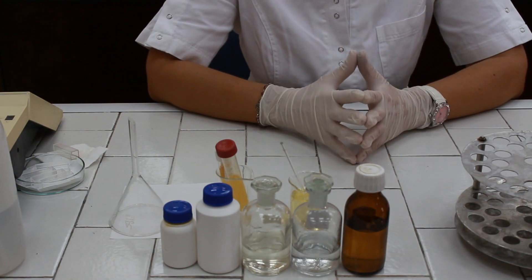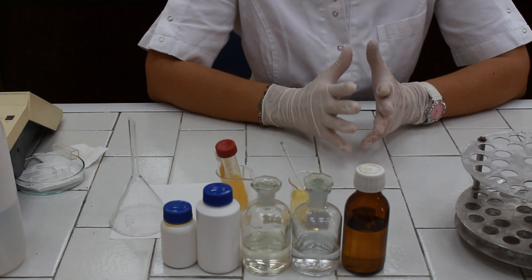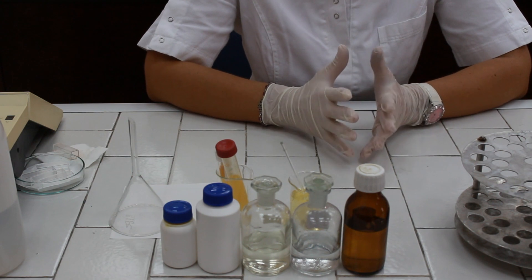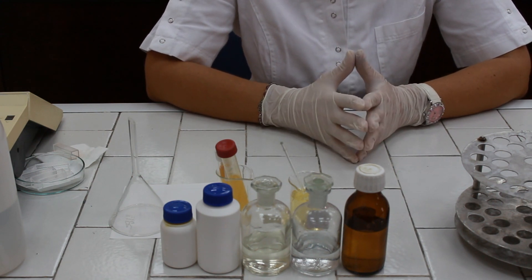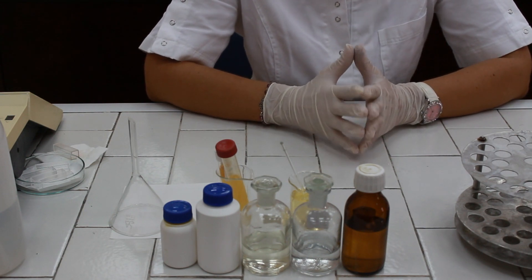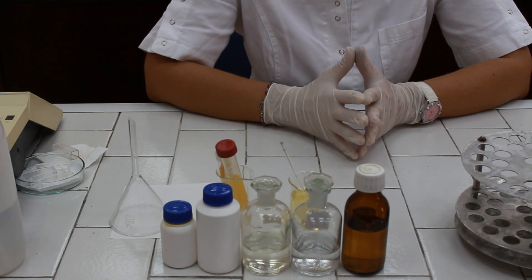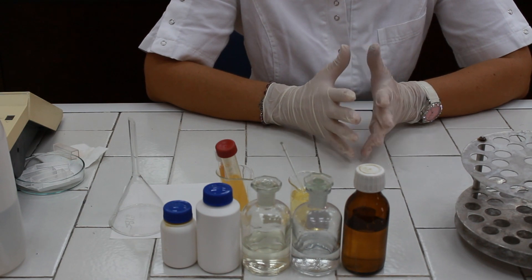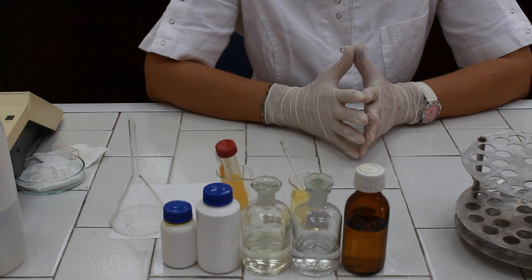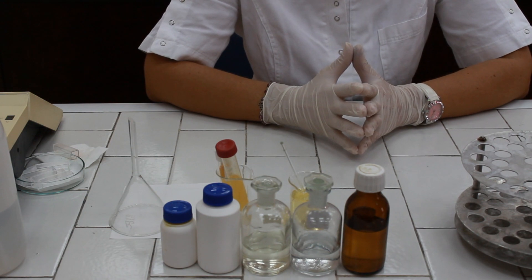Qualitative and quantitative determination of bile pigments in serum and urine. First we are going to show how bile pigments bilirubin can be determined qualitatively in a sample of serum. We are going to prove the presence or absence of direct and indirect bilirubin, then show the qualitative reactions for determination of urine urobilinogen and urobilin, and finally show the procedure for quantitative determination of direct bilirubin in serum.